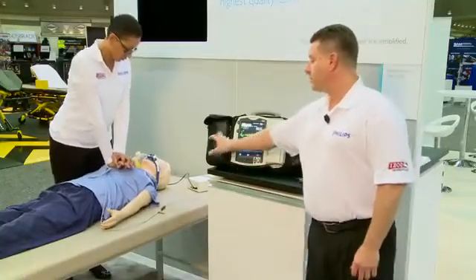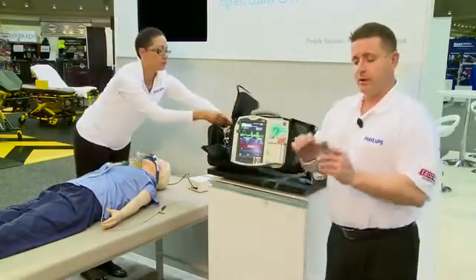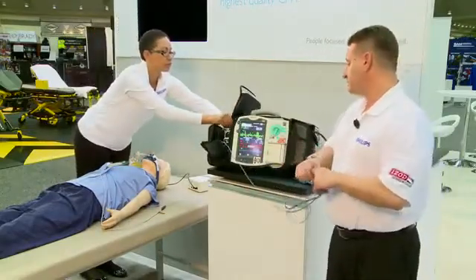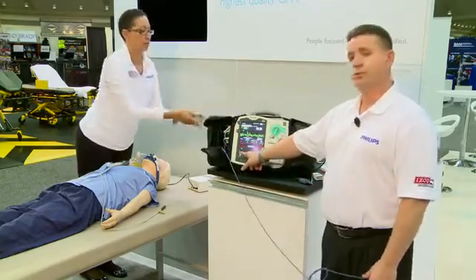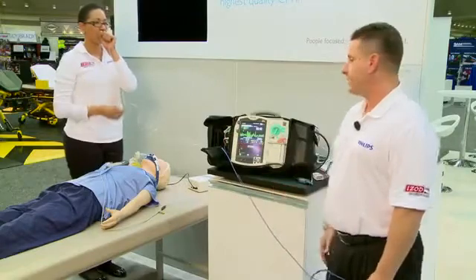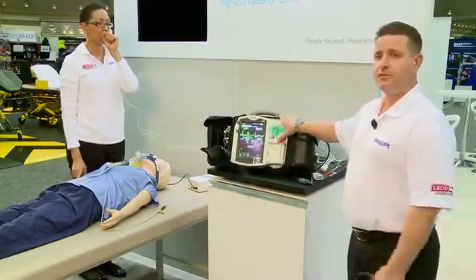We can continue to build our patient data load up. We can evolve into pulse oximetry. We can change from pulse oximetry to end-tidal CO2 when we place the airway to validate that airway. From that feature again — speed to shock, ease of use.